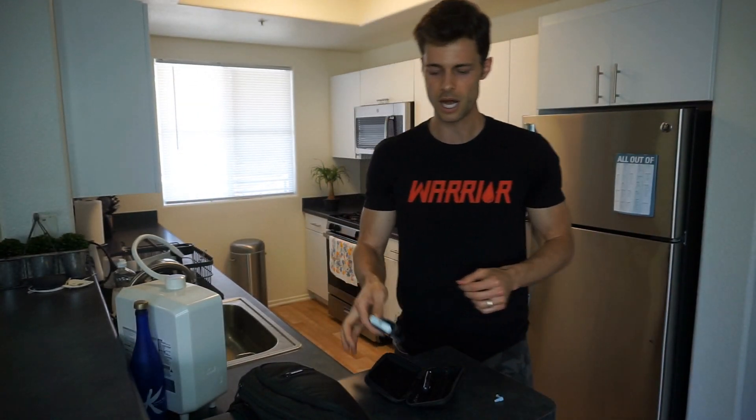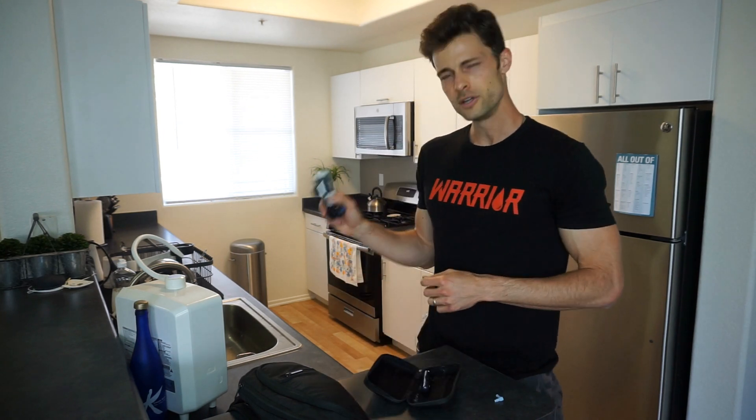109. As you can tell, 109 is a great blood sugar — I'm feeling awesome about that. I just wrapped up a workout, so I expected my blood sugars to be closer in range. Blood flow is obviously better when you're exercising as well, so the warm water helped, but it was already primed and ready to go. So 109 — what I'm going to do now is document that.